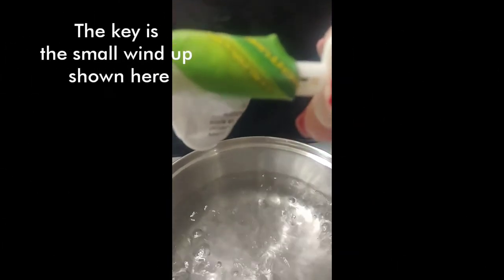Maybe the third time that you use your comfort lining will you need your key. I'm going to gently place my tube in the boiling water, then lower the heat down to about medium or medium-low. I don't need it to continue boiling, so I'm going to keep my tube in here for about 10 to 15 minutes. When my timer goes off, then I can apply my comfort lining.